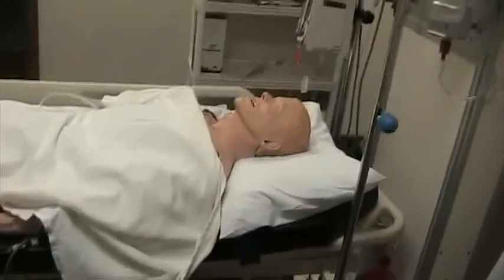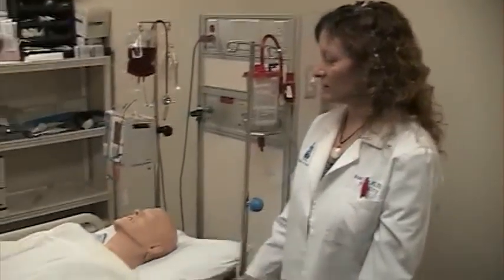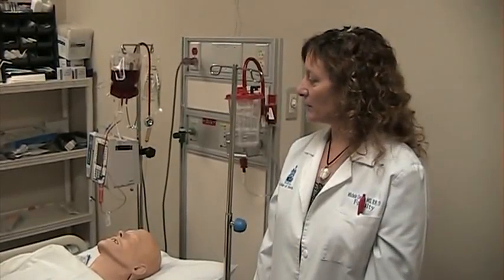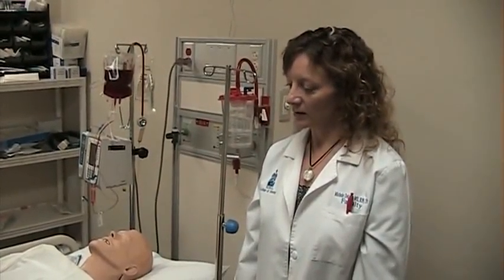So that is an overview of the sim room. What you're hearing now is the compressor cycling so that he can breathe, so get used to the noises in the room. But for the most part, the room looks like a hospital room, and we want you to take this seriously and treat it like a hospital room. The other thing you need to remember is each scenario will be different and have maybe different supplies or different names to the simulator, but be ready to participate. And that is all I need to tell you now about the sim room.